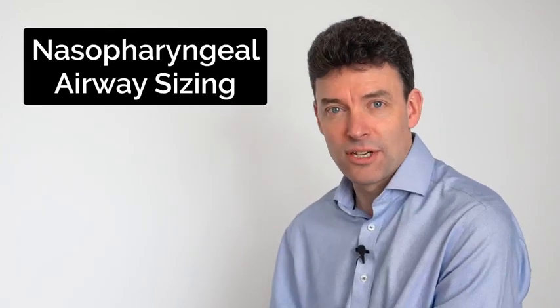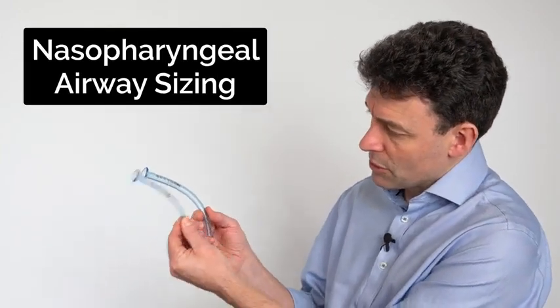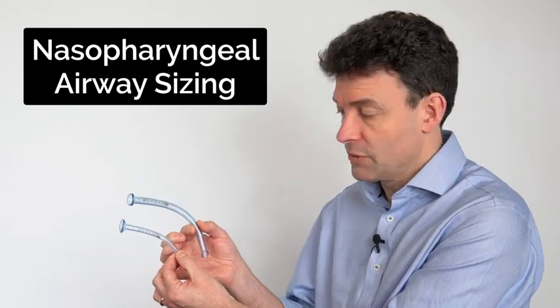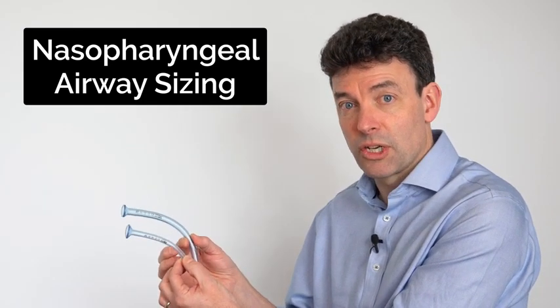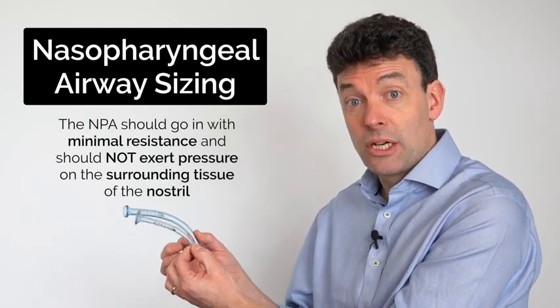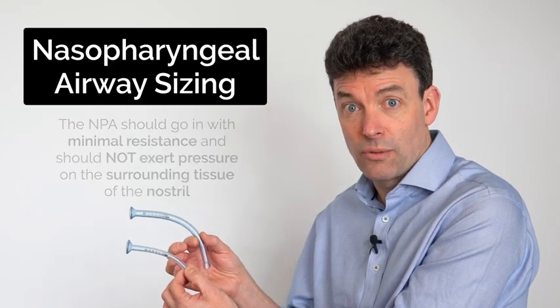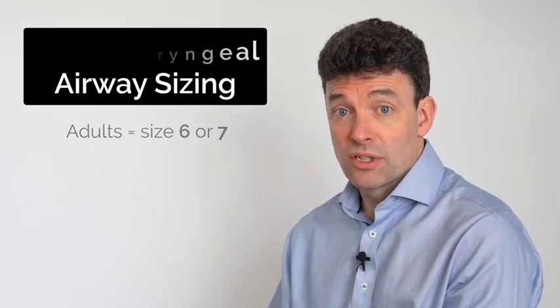There are several different sizes of nasopharyngeal tubes. For example, here are two. This one, slightly smaller one, is a size 6, and this one is a size 8. There's no reliable way of sizing the right tube for the right patient, but it's a matter of looking at the patient's nostril and seeing which size you're likely to get in. In general, you want to make sure that the tube goes in easily without causing extra pressure around the skin of the nostril. Most adults will be fine with a size 6 or a size 7.